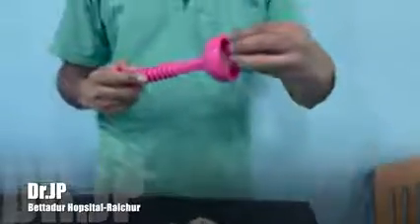Then came the silicon cups. Many people are not very comfortable using metal cups, though I feel that fear is unfounded. Silicon cups, because they are malleable, can be inserted very easily and can be adjusted according to the position of the baby. The chignon formation is uniform as compared to metal cups where chignon formation is only within the cup's diameter — so with silicon, the chignon formation is spread over a larger area.